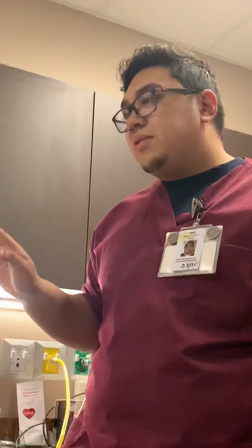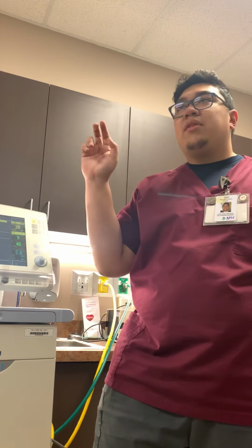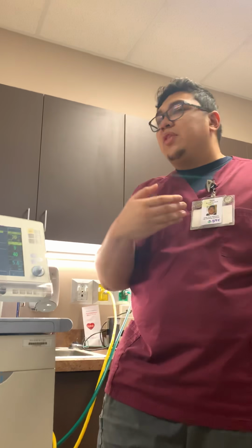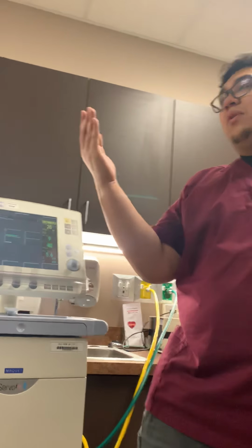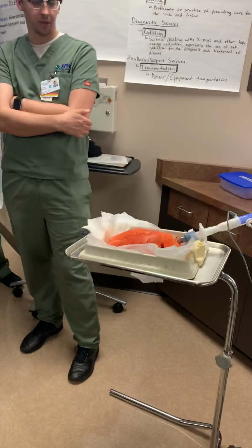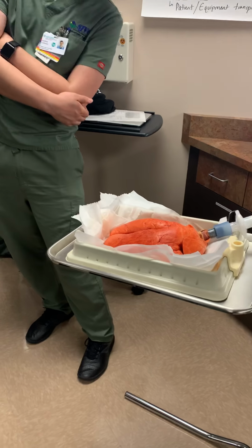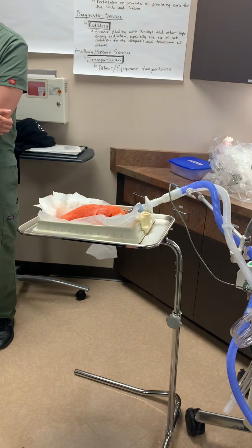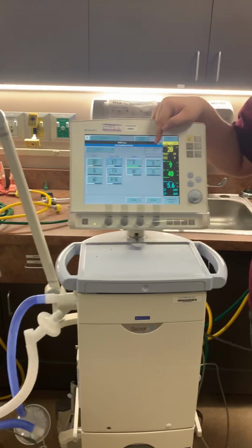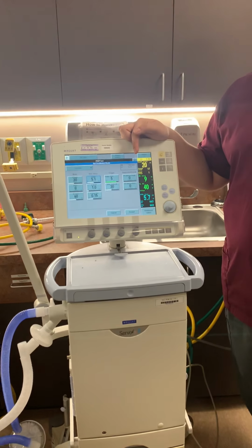And if you take a look at the lungs, you'll actually see it doing what we call a sigh breath, which is letting all the air out, and then inflating it again and holding it. It's pretty cool. Super backwards, but it works. You can also see that we have supported breaths on here. So that tells you that they planned for spontaneous breaths from the patient.